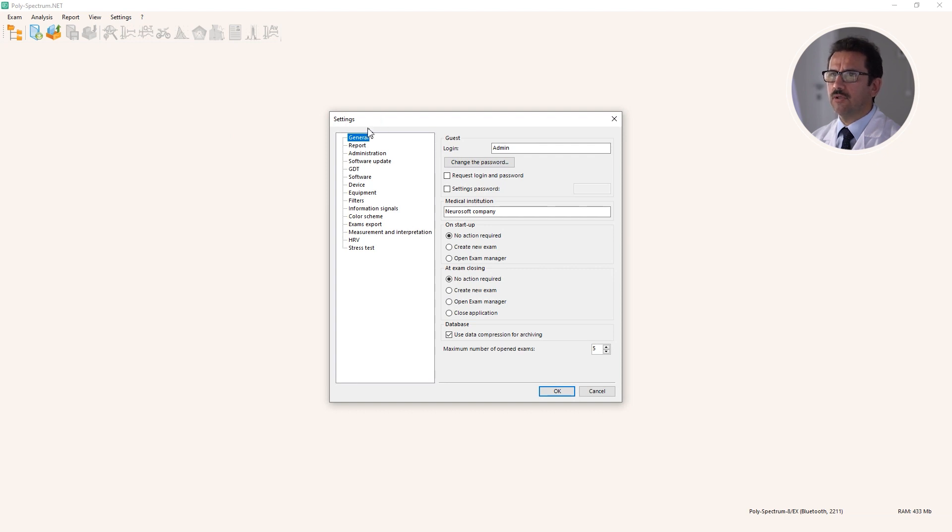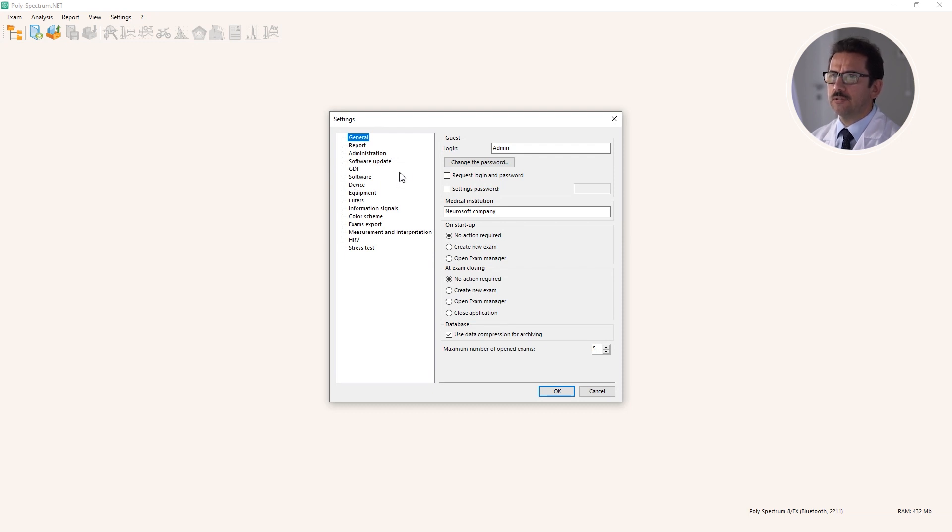Here you can see a lot of different settings, but we'll just go through some of them that may be important during this exercise stress test.